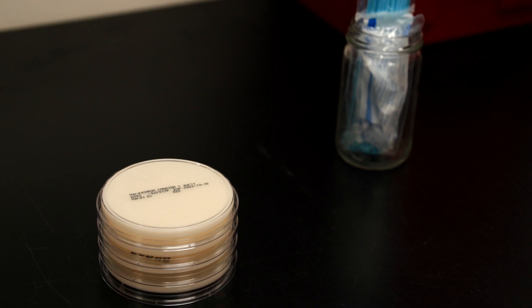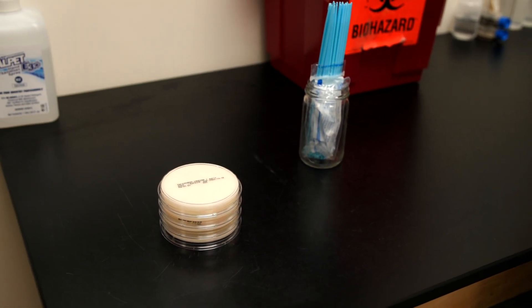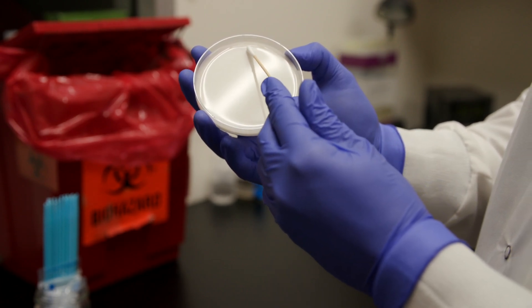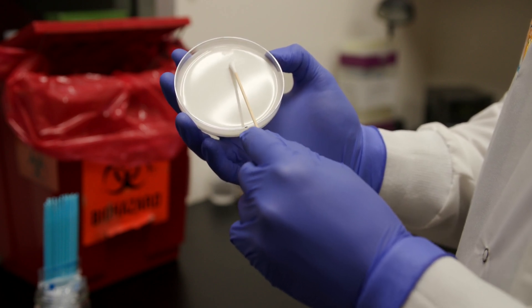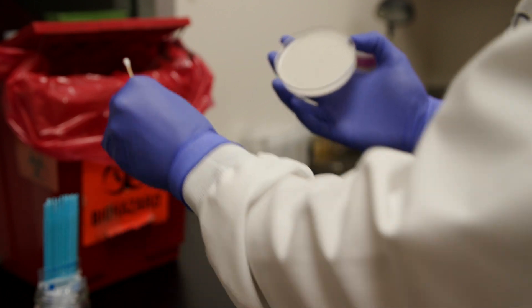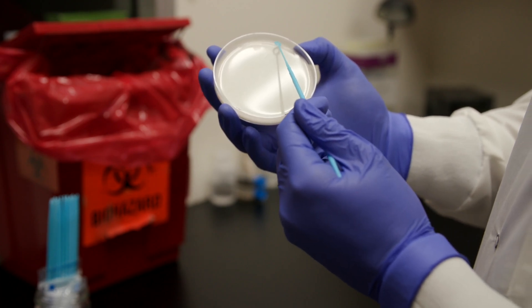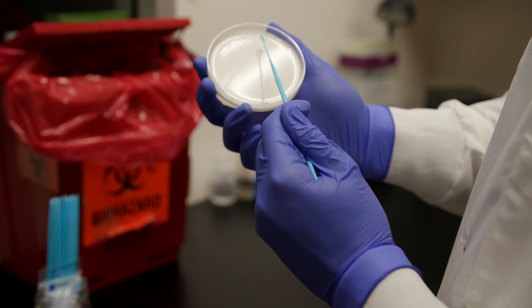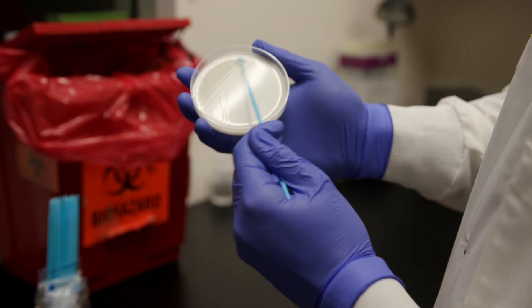To begin, ensure that you allow the petri plates to warm to room temperature before inoculation. The surface of the plates should also be dry. Inoculate and streak the patient specimen as soon as possible after collection. Use a four-quadrant streak to obtain well-isolated colonies. If the specimen to be cultured is on a swab, roll the swab over a small area of the agar surface, then streak for isolation with a sterile loop.